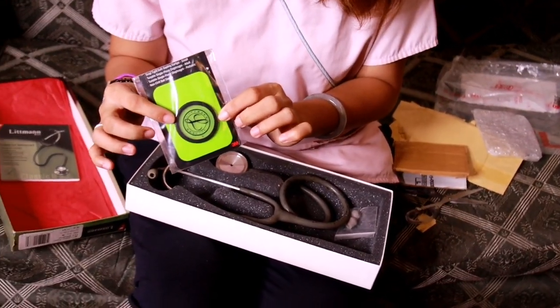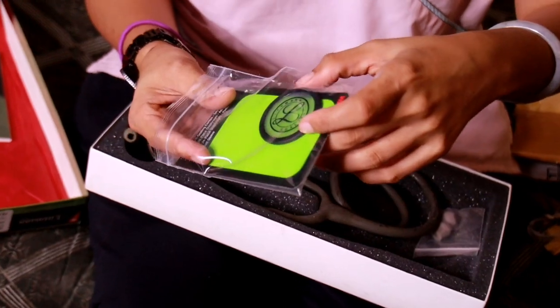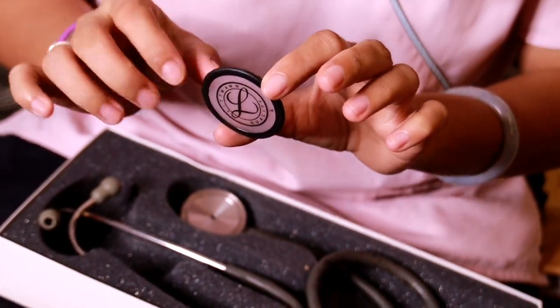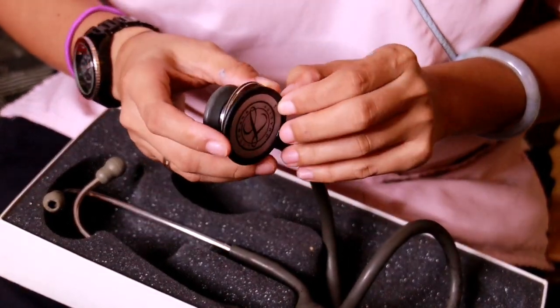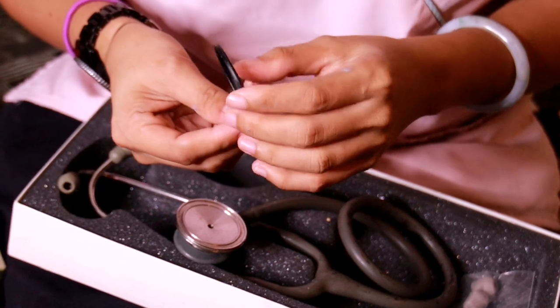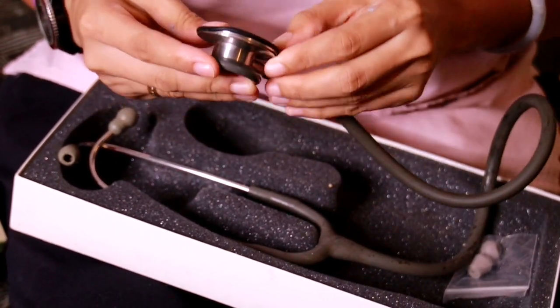The ring is color black — there are no other available colors — and I will try to put it in my gray stethoscope. I don't mind the color difference, as long as I have my membrane and ring, because I've needed it for quite some time already.